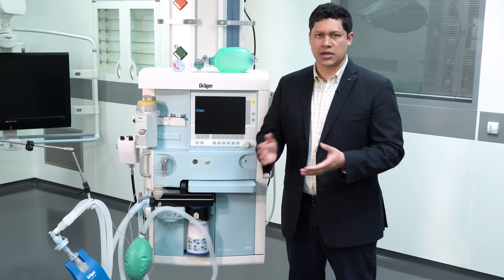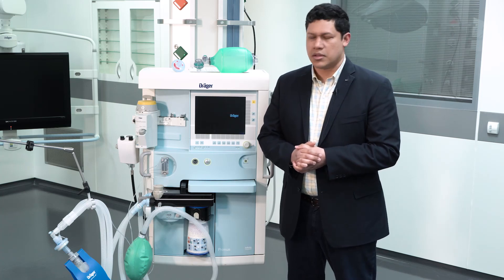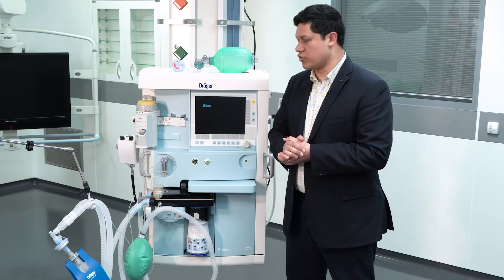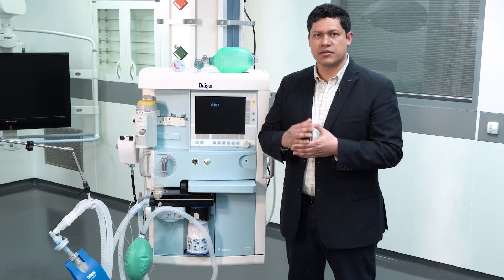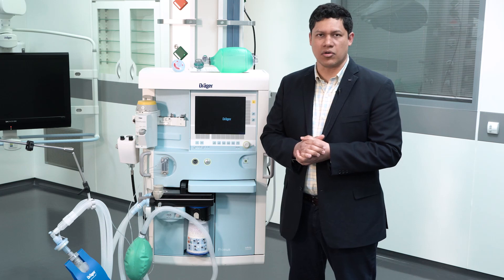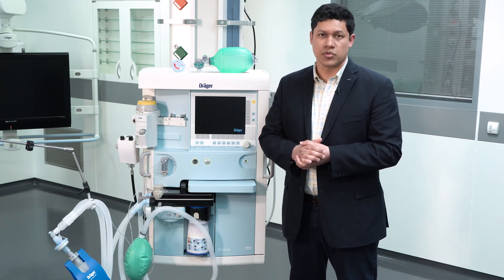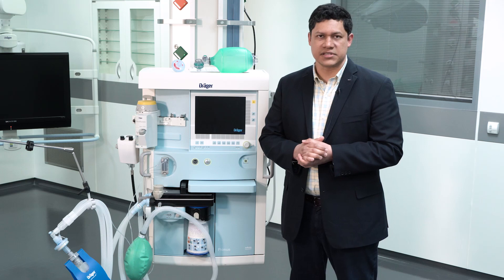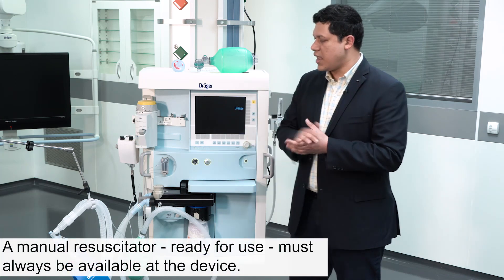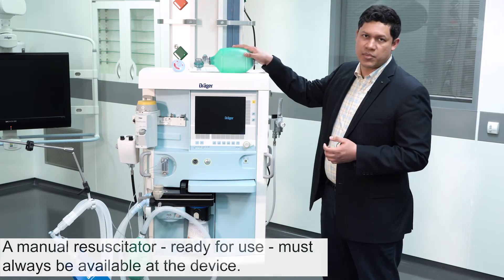Another important clarification concerns the manual spontaneous mode. The manual spontaneous mode available on the anesthesia device is a unique feature not available on the majority of ICU mechanical ventilators, and it could be life-saving in the case of a mechanical ventilation failure and the absence of an external manual breathing bag.